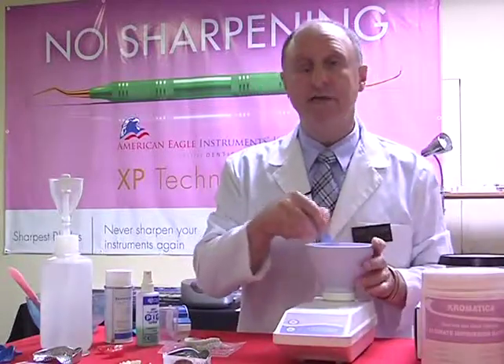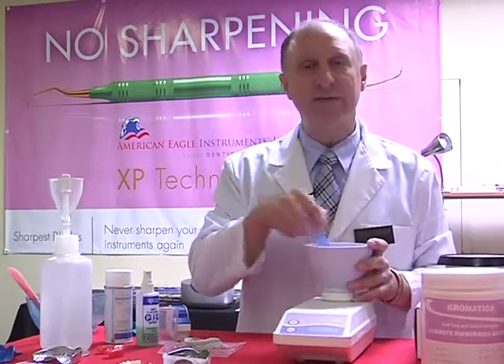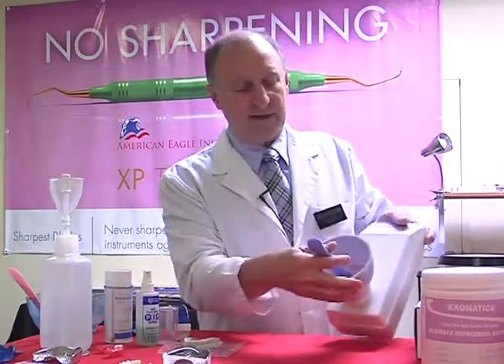Now the first thing I do is lightly wet the material that's inside the bowl. Once everything is moist, I'm going to turn this towards you so you can see, because right now you're probably wondering what's happening inside the bowl. So let's revolve that around a little bit.